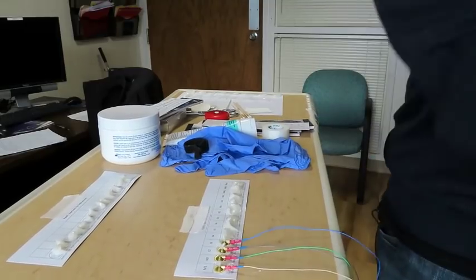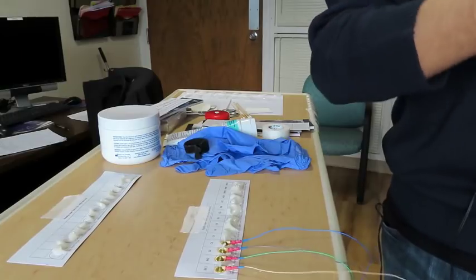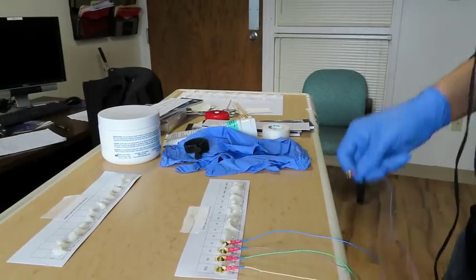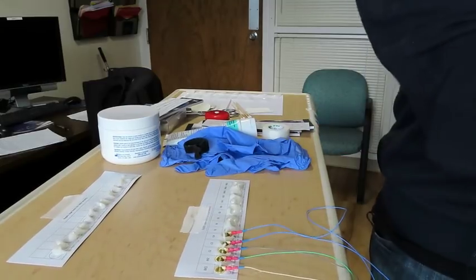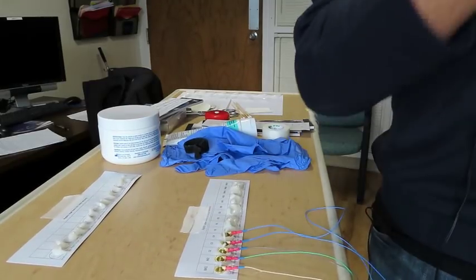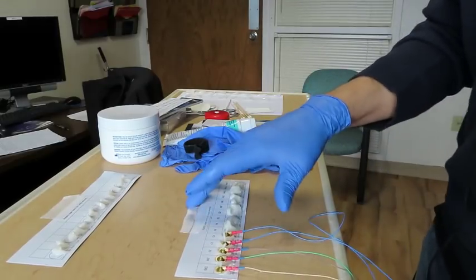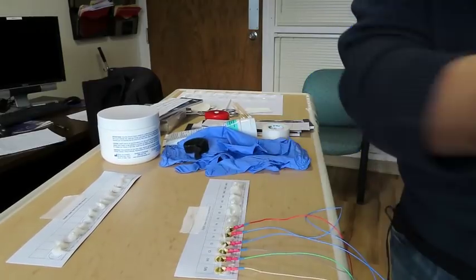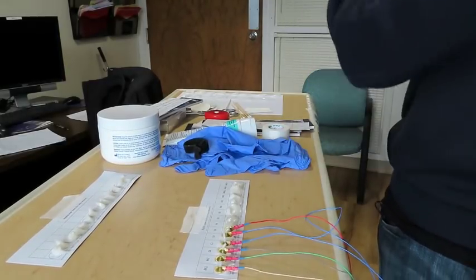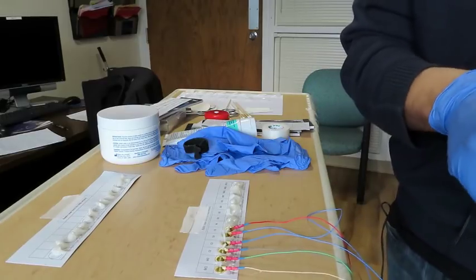Press good. So the best thing to do is to make sure to press the wires really good, and you'll know your inputs. If you're new to your lab, you'll have a piece of paper that shows you where everything goes and where these need to go on this palette here. So again, just showing them, bringing them on there real quick. Okay, and the other good thing about this, it helps to prevent tangles of wires.